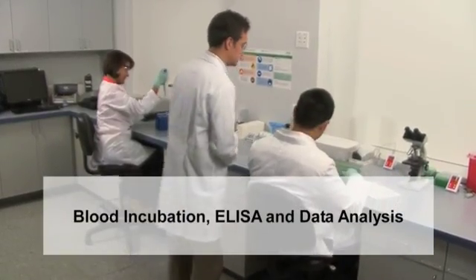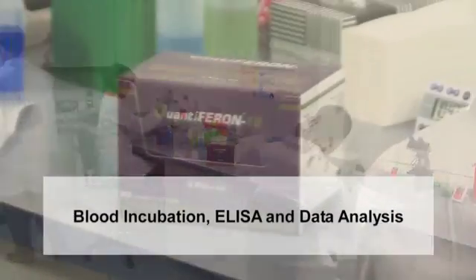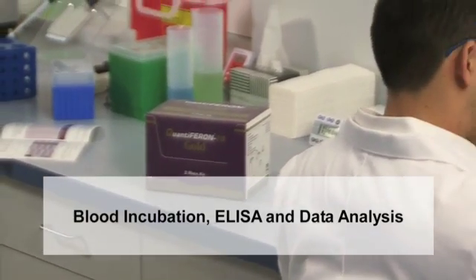As laboratory personnel, the blood incubation, ELISA, and data analysis sections may particularly pertain to you.